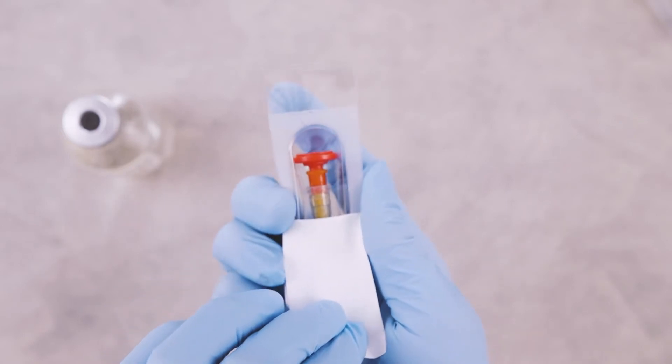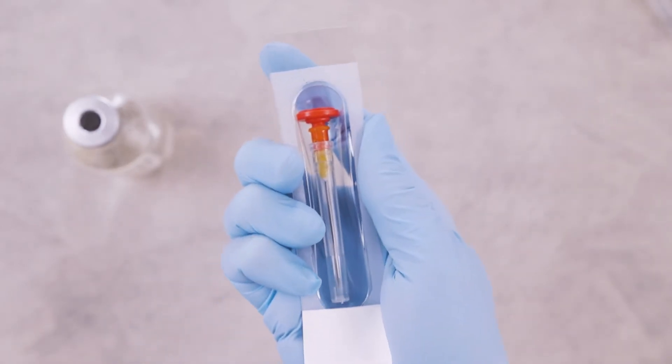To use, simply hold the package firmly and peel open while maintaining aseptic technique.